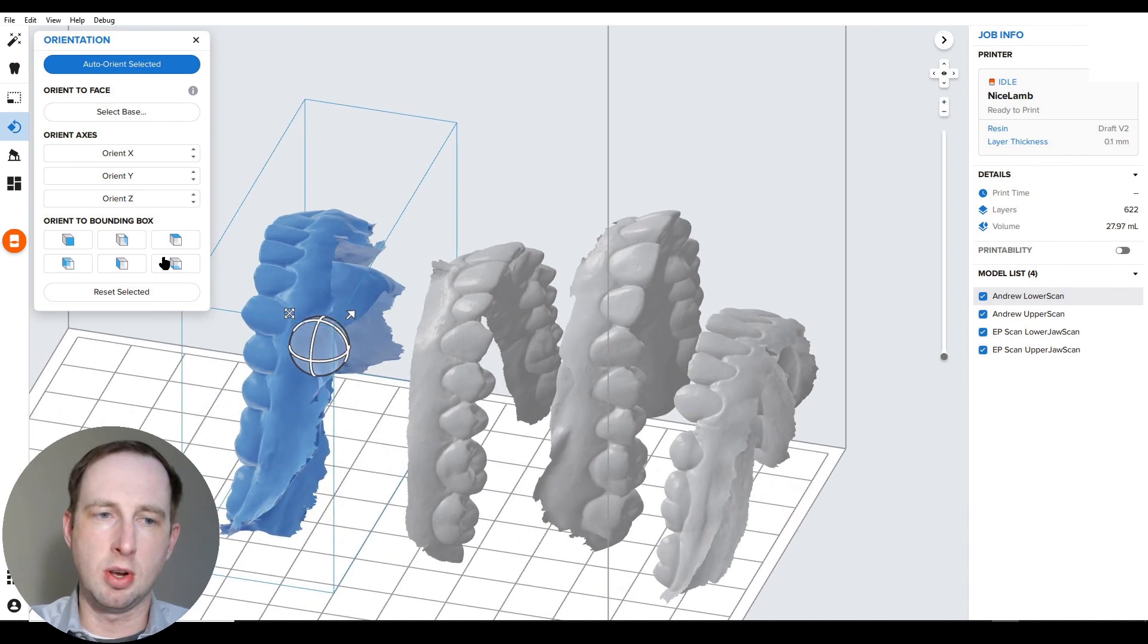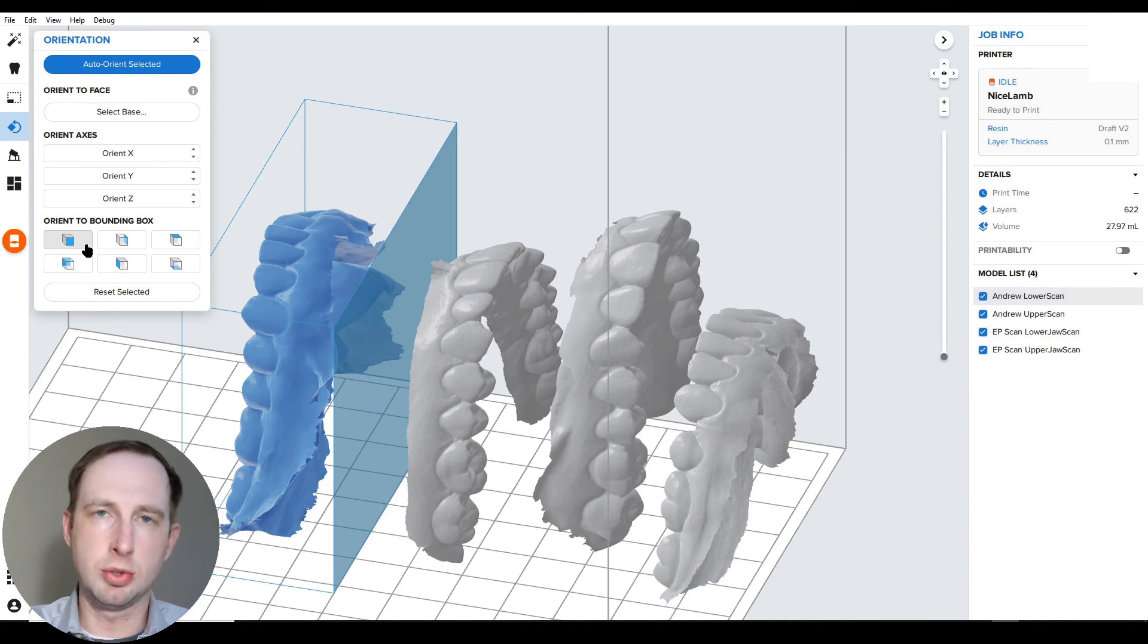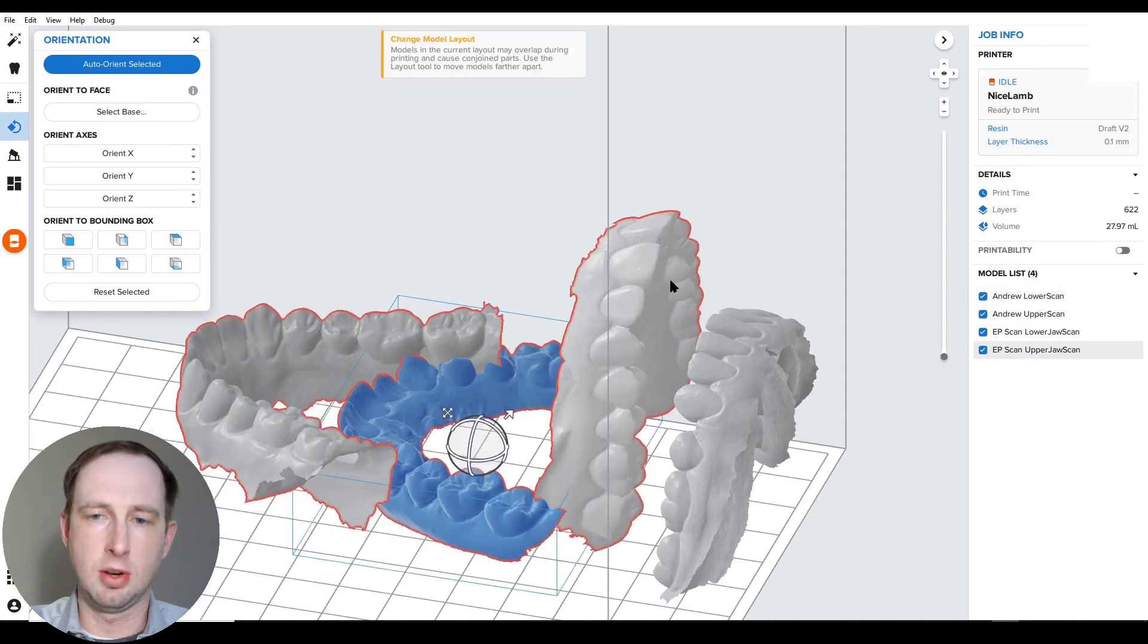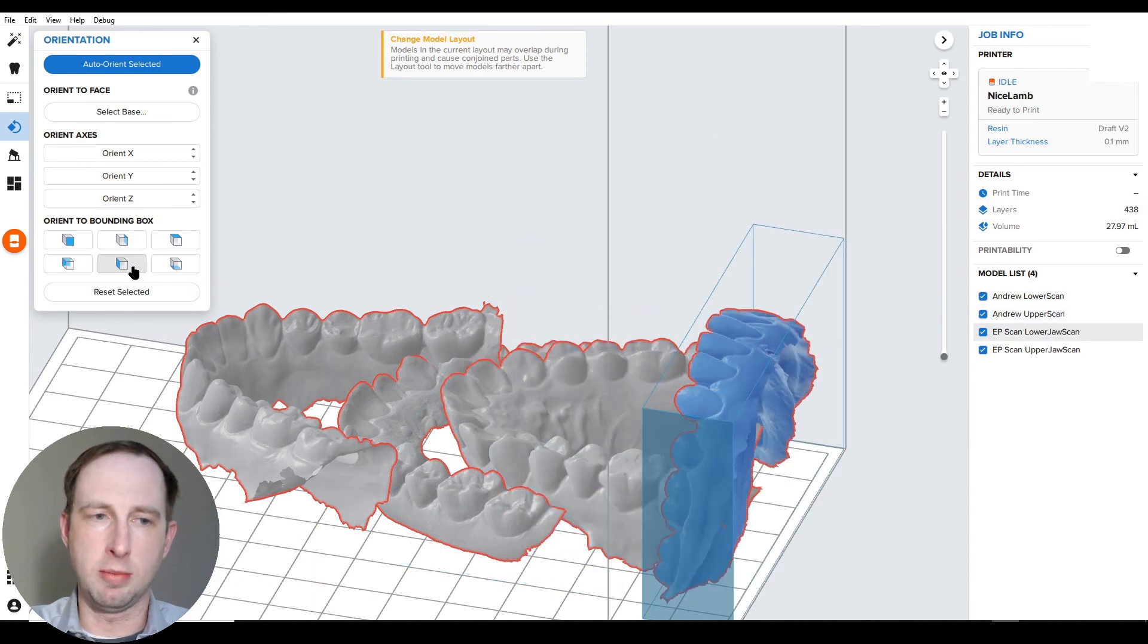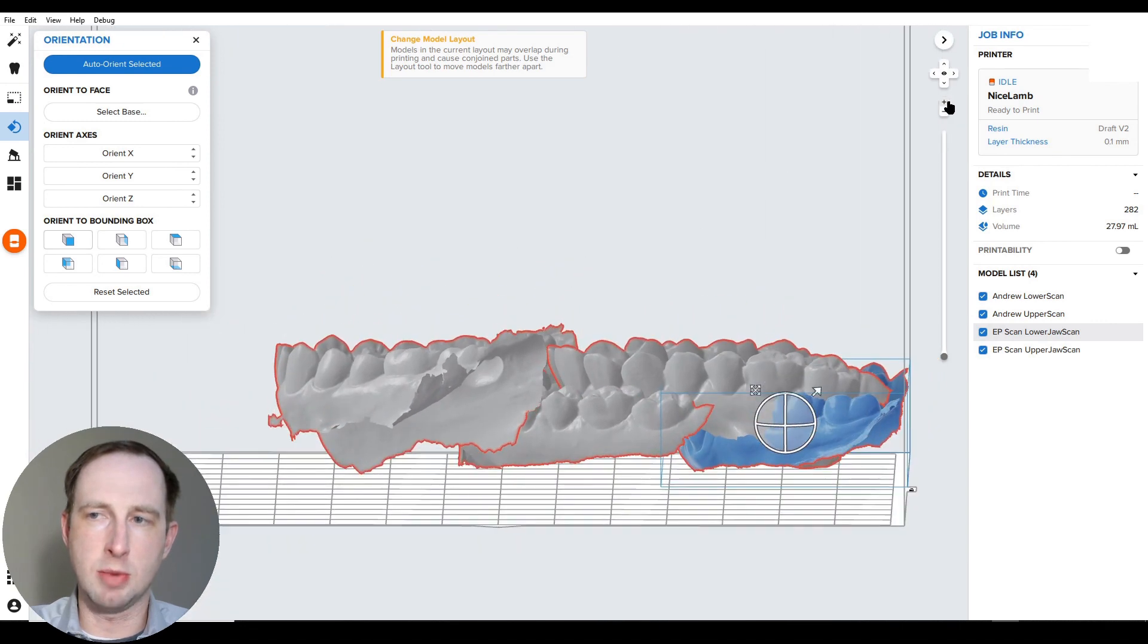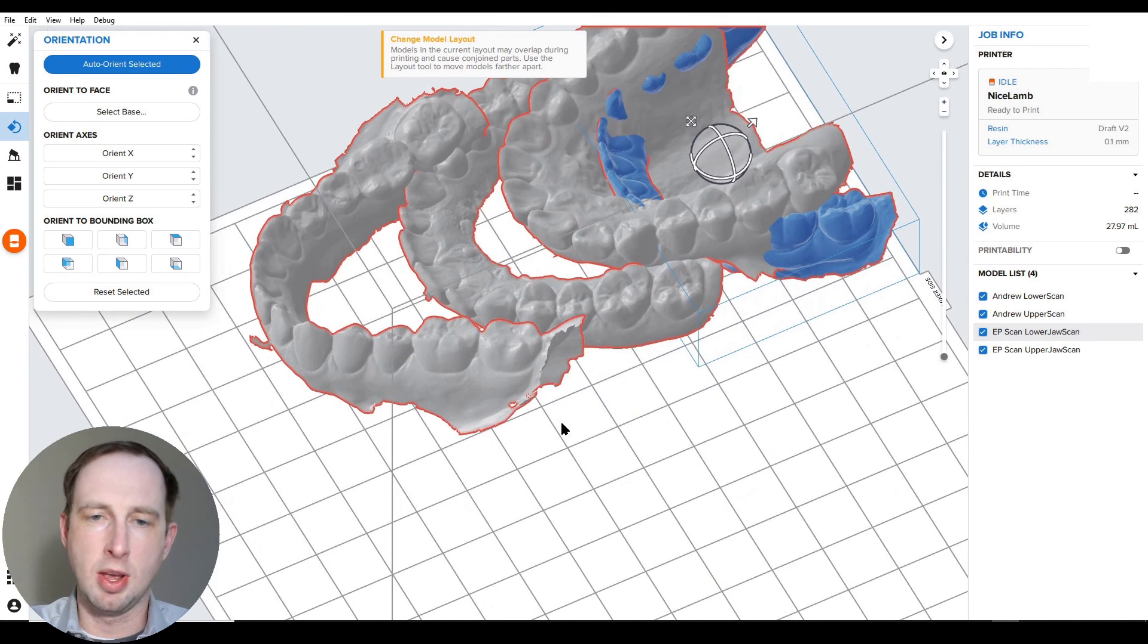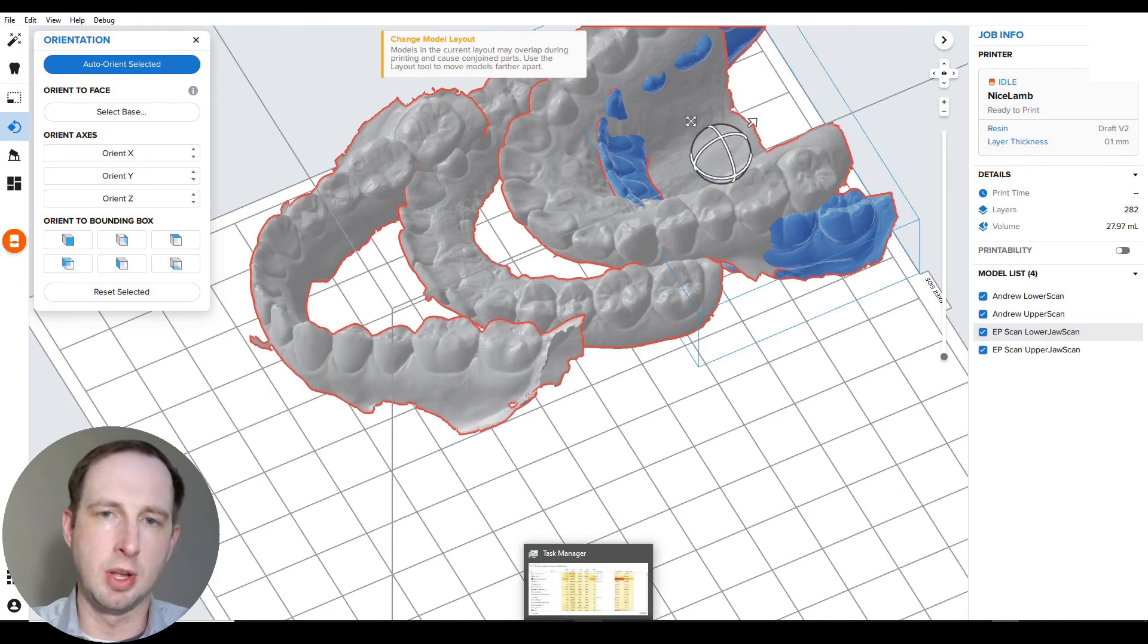Orient to bounding box is extremely quick for this workflow. If you notice, you hover over these boxes and it shows you what surface you want facing the build platform. Just like the normal workflow, you want the occlusal anatomy up or away from the build platform, and we want the open mesh down. So quickly you can find exactly where that is on each of these. Once you have that, like I showed in my previous video, you can make small adjustments by changing the view and tweaking the rotation sphere. But for this workflow, I'm just going to assume the occlusal plane is pretty close.